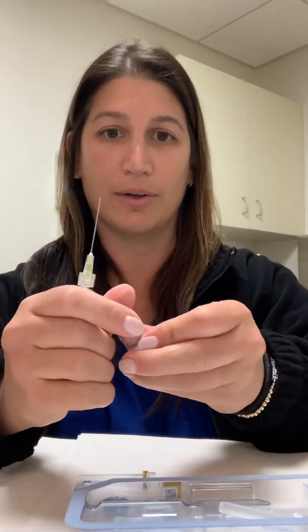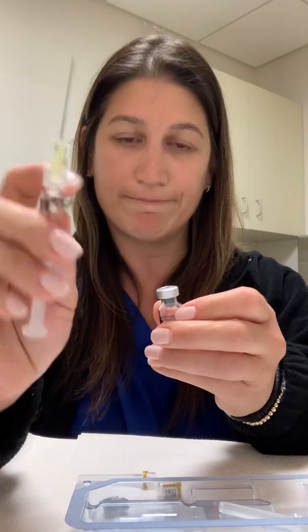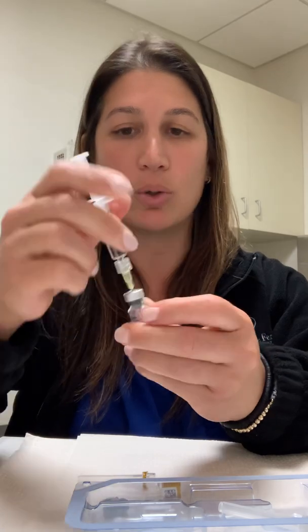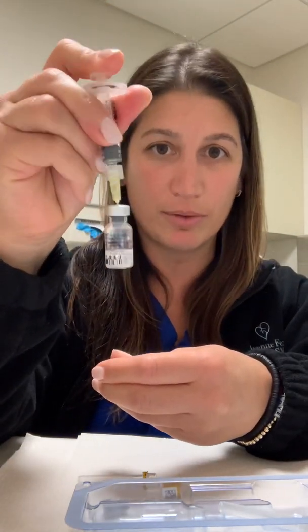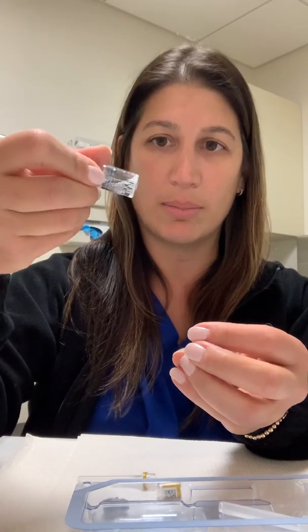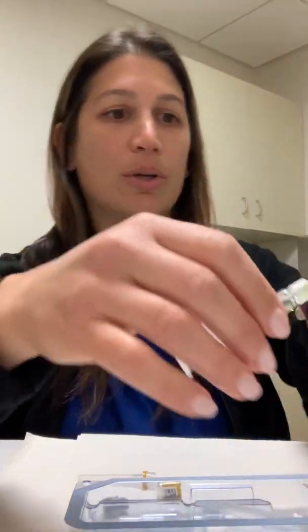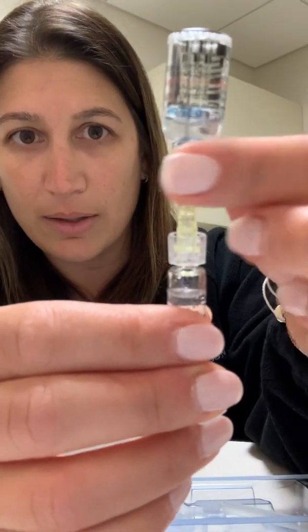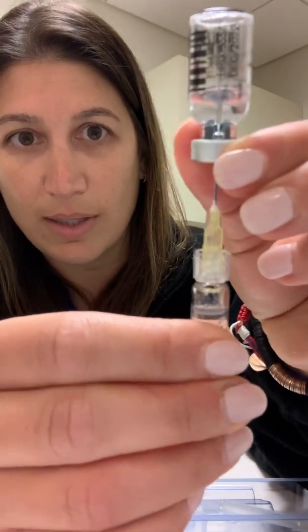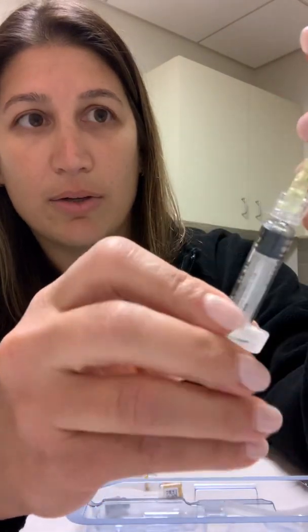You're going to take your vial and pop that cap off. This needle is not going in your body. Put it into the vial right in that center hole. You're going to inject all of the fluid that's in the syringe into the vial. Give it some swirls and let it mix up — it might have a couple of chunks in it, so just continue to swirl until it's clear. When you go to draw this up, there's a little rubber stopper. There's a little tiny window, so you want to bring that needle tip down in that window and draw everything out that you can get.